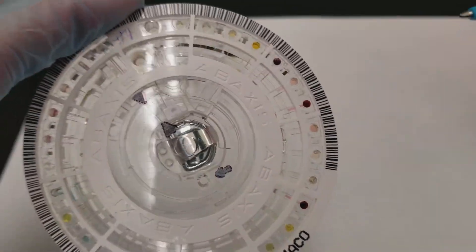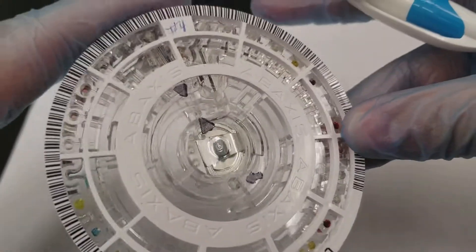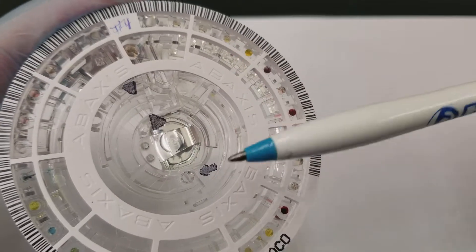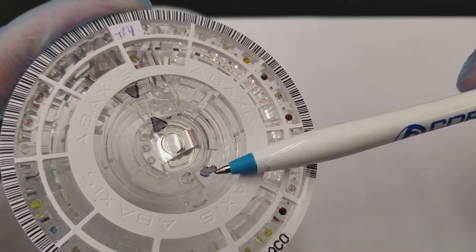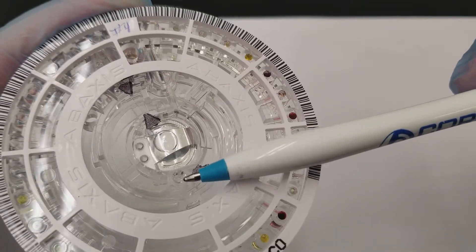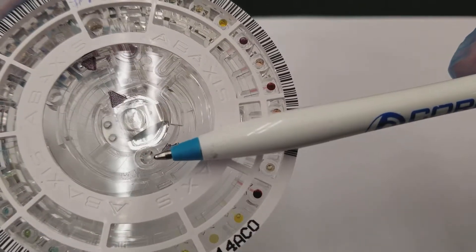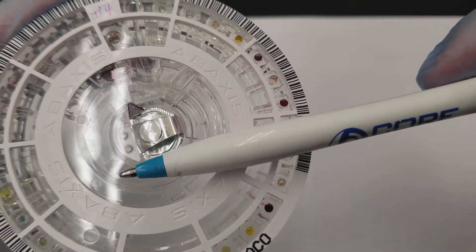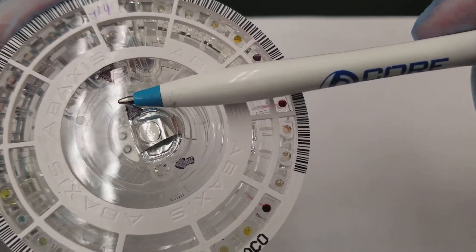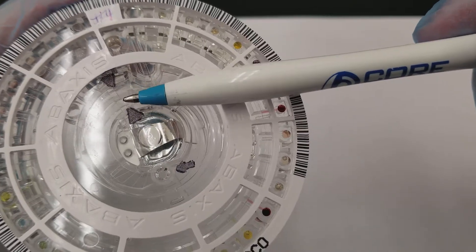So what I did was I went and I drew in that etching so that you'll see with the black Sharpie marker where the stuff is. So the arrow that points to the specimen injection side is right here and then here is the fill window and here is the fill line.